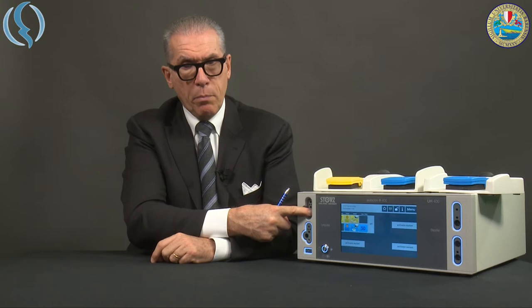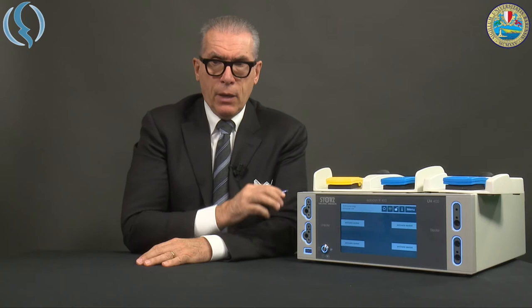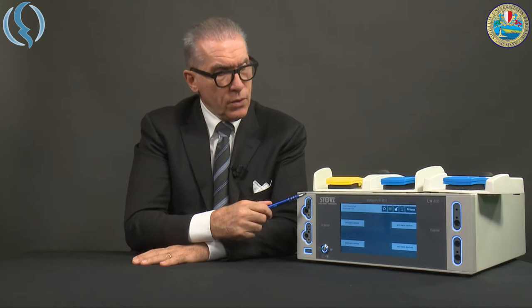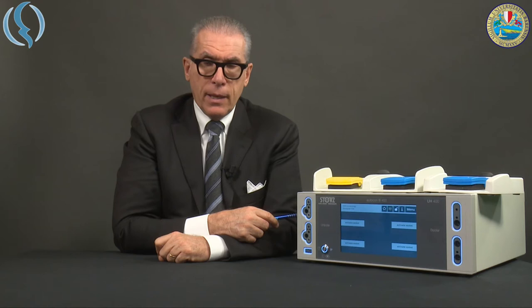These connectors and sockets are characterized by the fact that when we plug in, the light disappears and the menu appears. If you release, the menu remains here, unless you push it off and the menu disappears. The machine is divided, outside of the screen, into main parts: this area is for the unipolar connectors and this area is for the bipolar connection. You can connect simultaneously two unipolar devices and two bipolar devices.